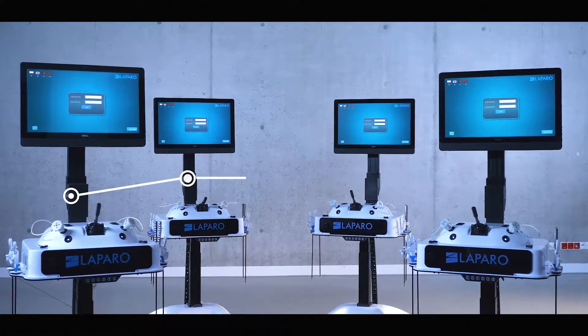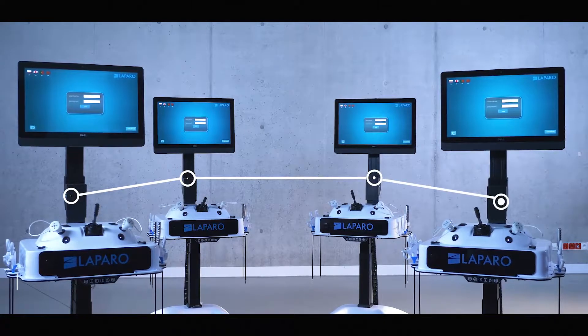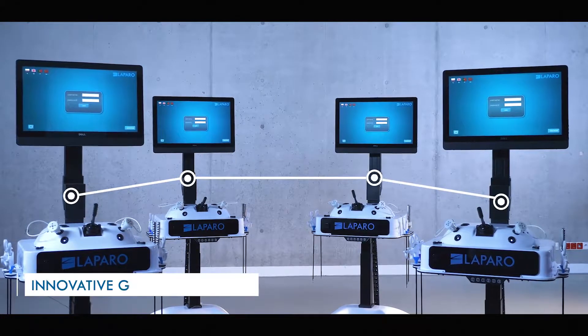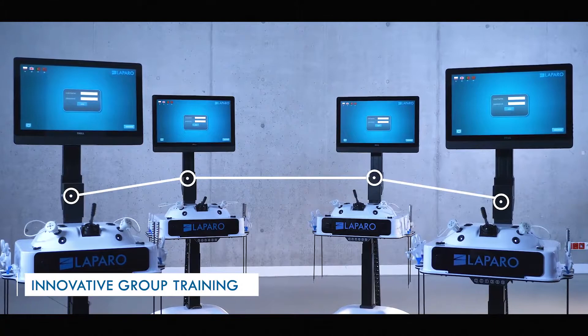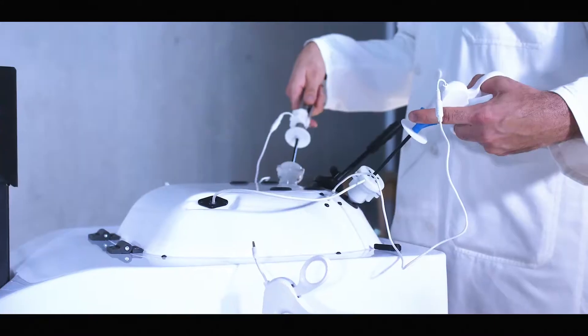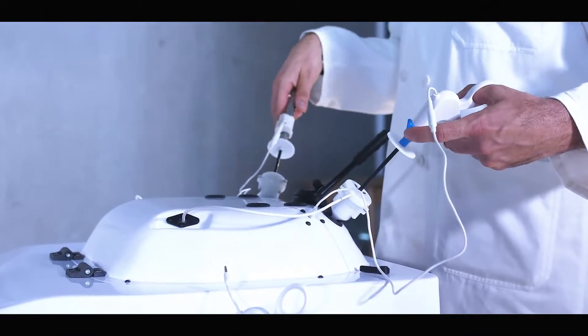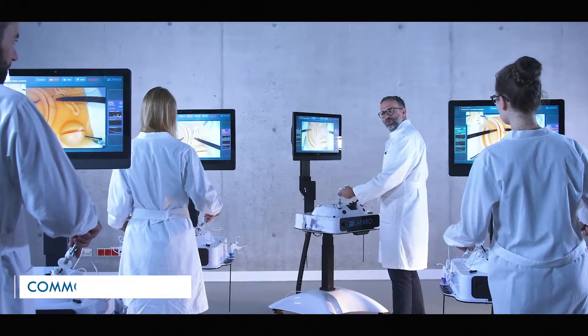LaparoAnalytic devices can be connected into one network. This introduces innovative functionality to group training sessions. The system uses a common database, so users will have access to their accounts at each station.